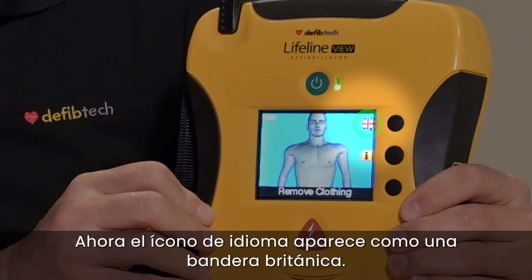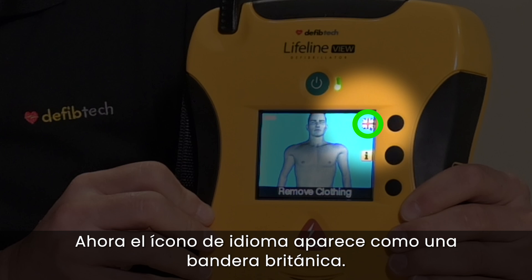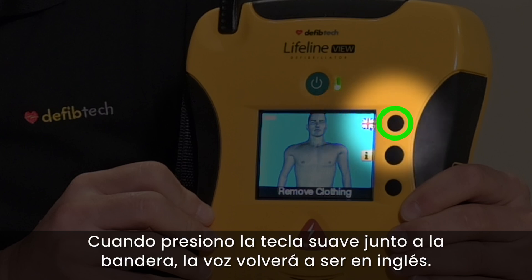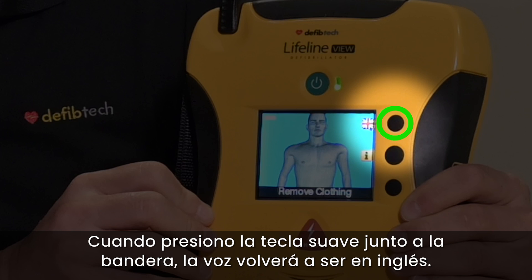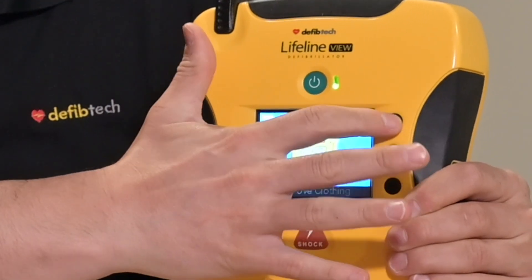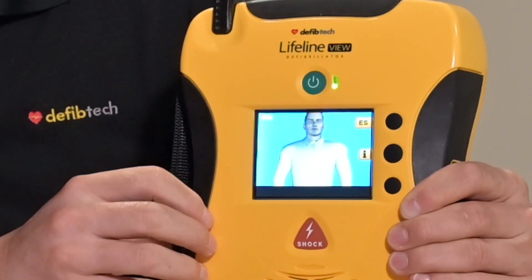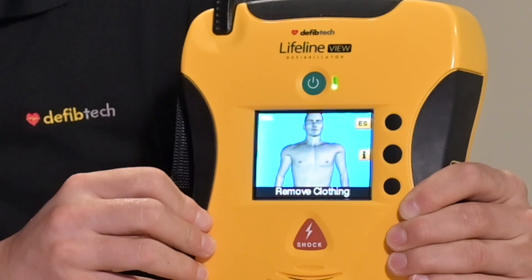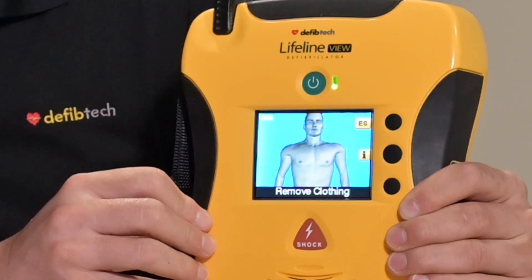The language icon now appears as a British flag. When I press the soft key next to the flag, the voice will go back to English. Remove clothing from patient's chest.